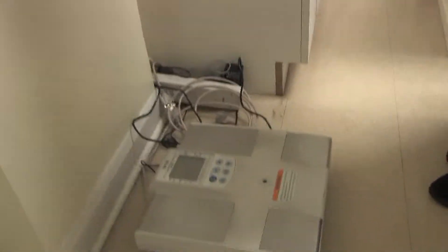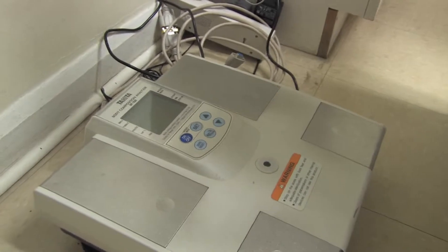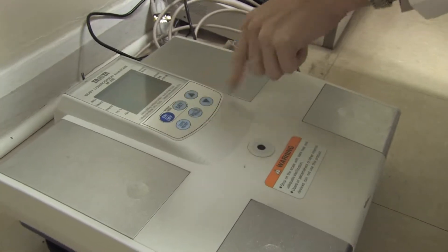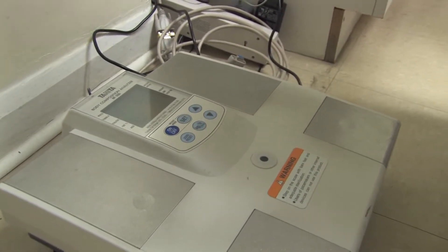In this clip we're going to use our digital scale right here. The first step with this particular scale is that we're going to turn it on and get it set up. We're just getting it set to zero, and once it's set at zero this indicates that it's ready to be used.